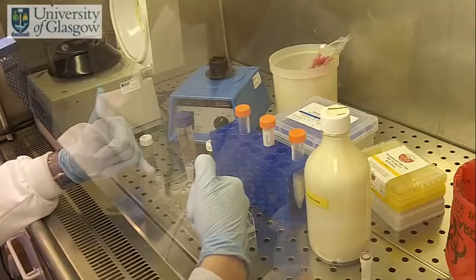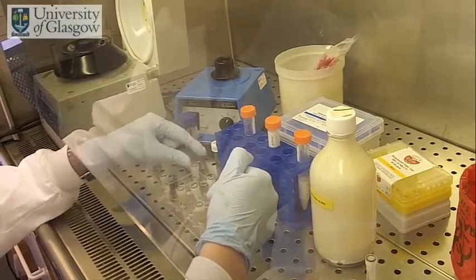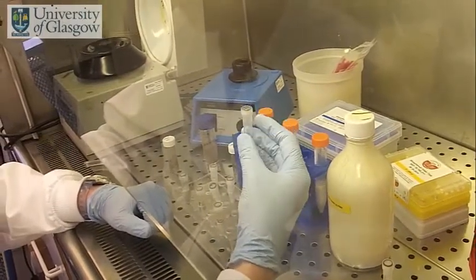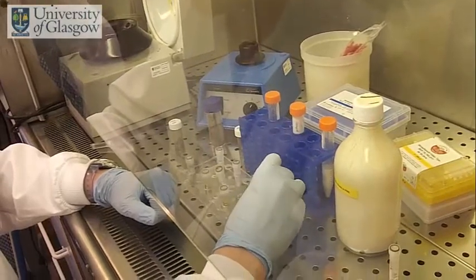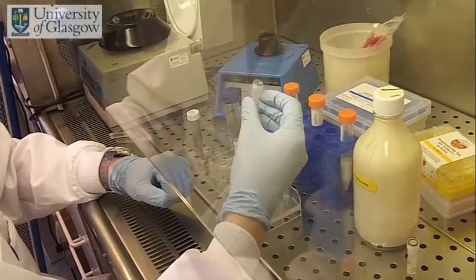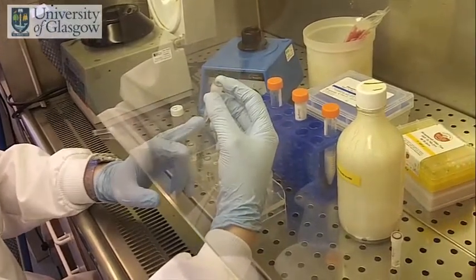The next step is to perform some dilutions. The dilutions are to help remove further inhibitory factors that may be within the fecal sample. So we have 95 microlitres of water in each of these tubes, one for a negative extract control, one for a positive extract control, and one for a sample. In addition, we've added a positive assay control. This is a known positive DNA for parvovirus. And in addition to that, we're going to add a spike. The spike is a test using our fecal sample from the patient and a dilution in positive control.